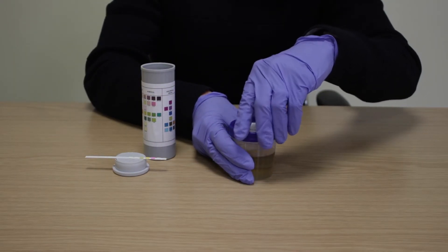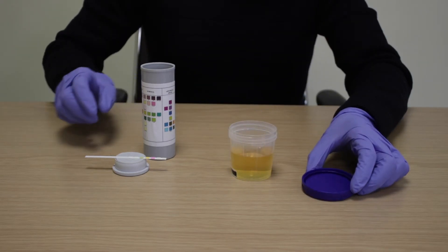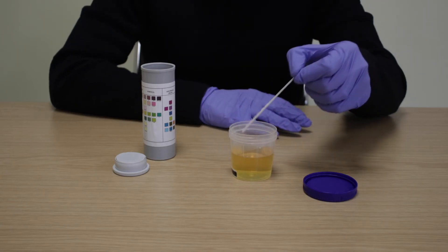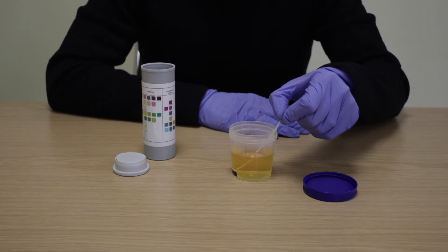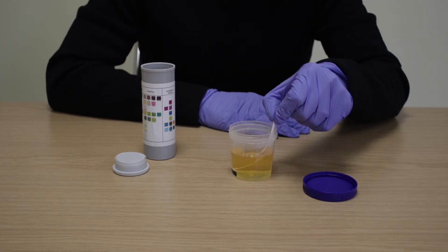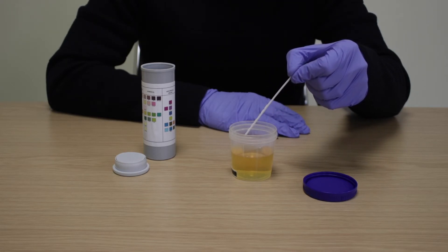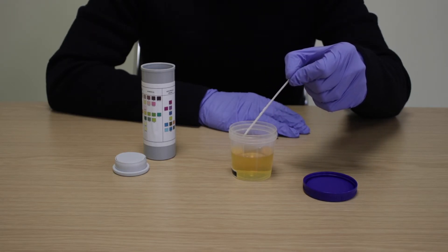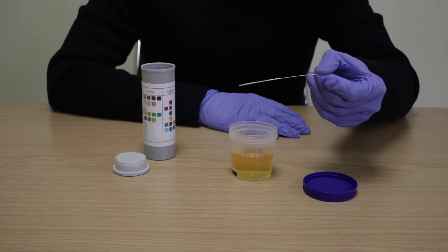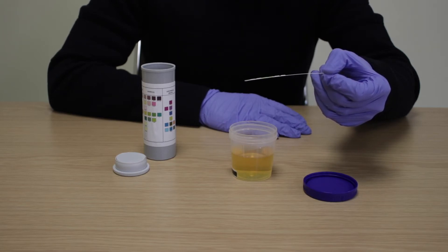Dip the strip into the urine sample for about five seconds to ensure all reagent test pads have been immersed. Remove the strip from the sample and gently tap it against the cup to remove any excess urine. Compare each pad on the corresponding color block on the chart provided.